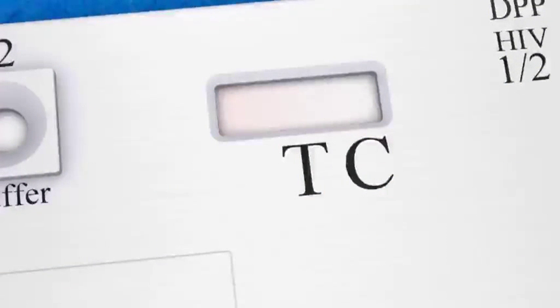After about three minutes, a reddish color will spread across the strip in the test window as a signal that the lines are starting to appear.